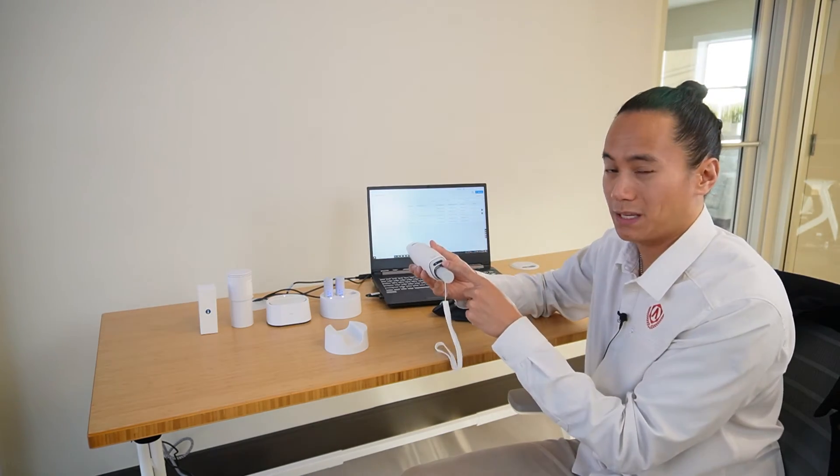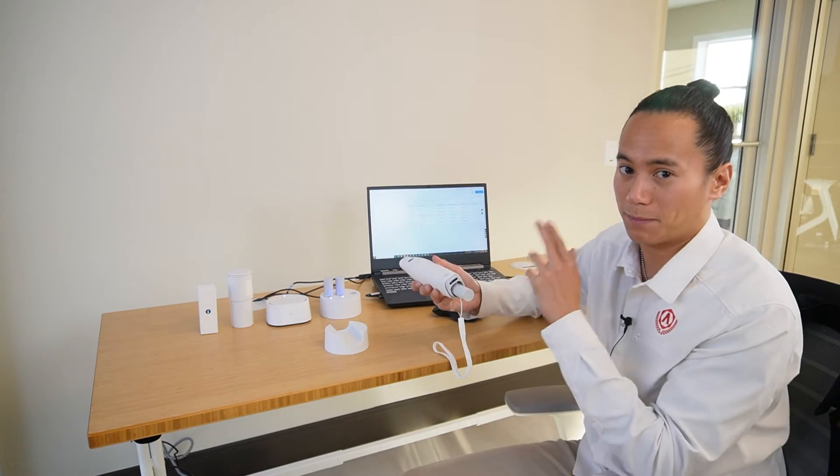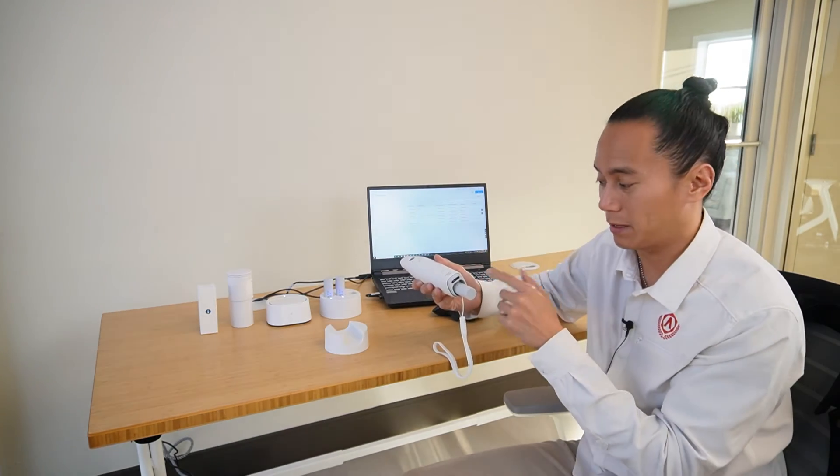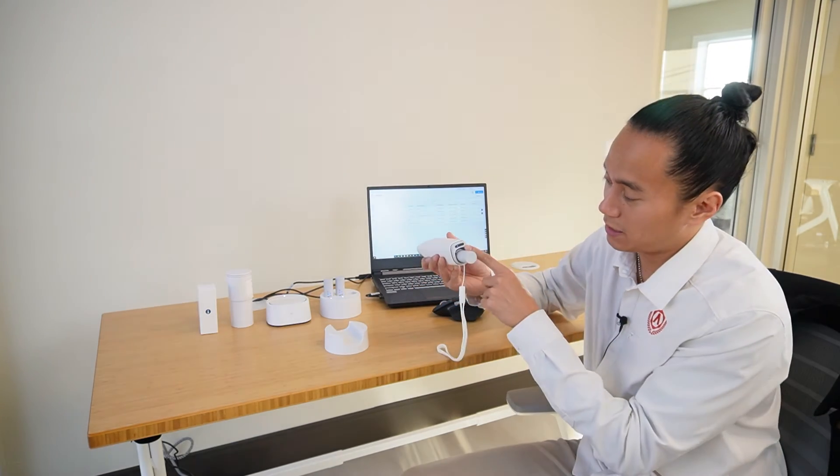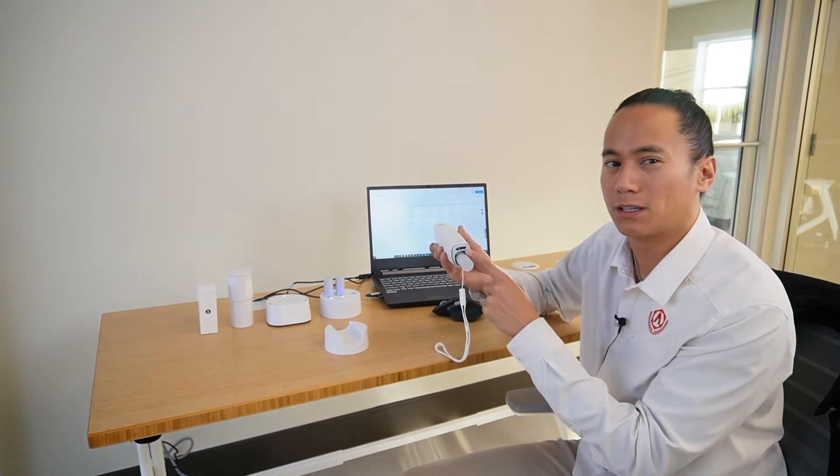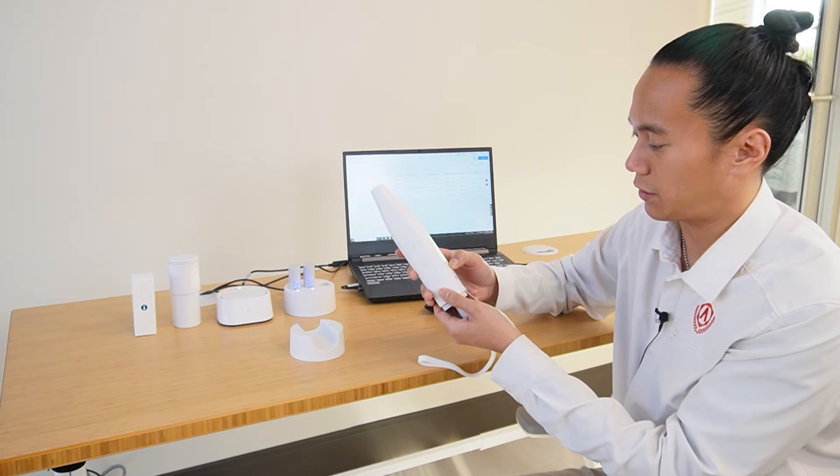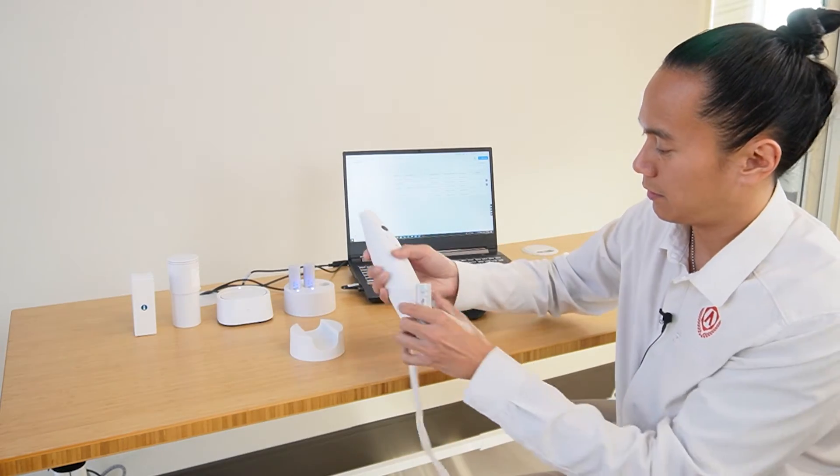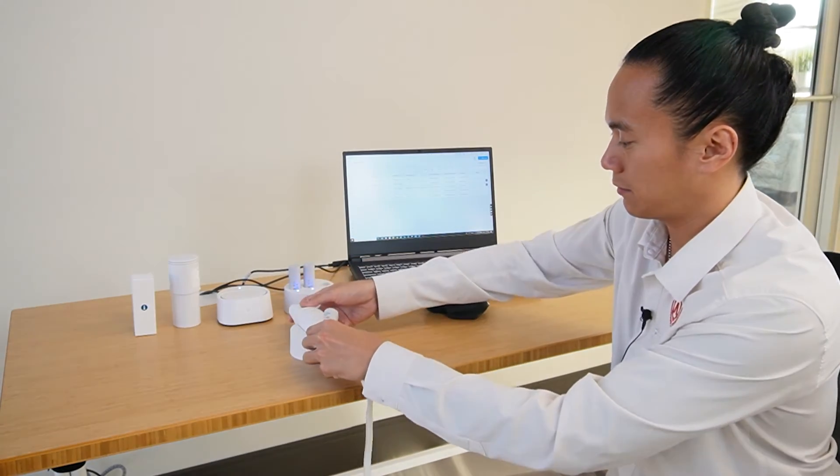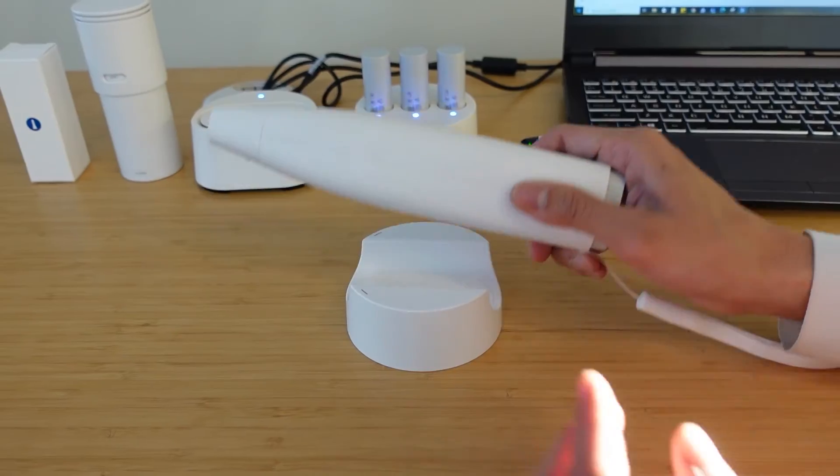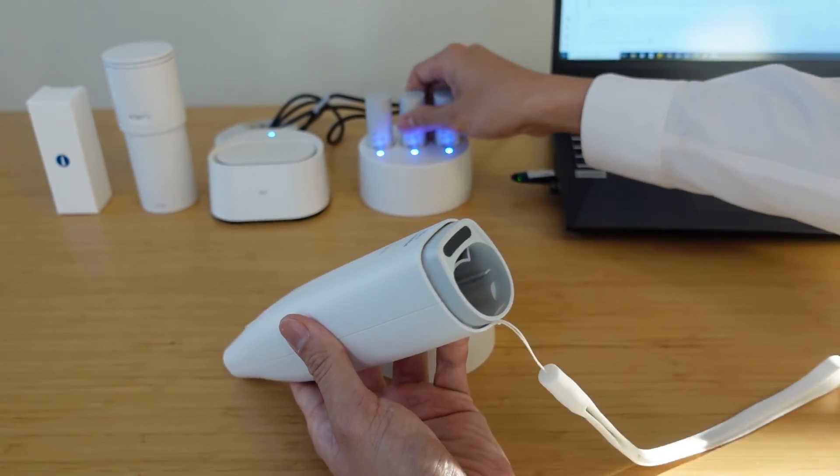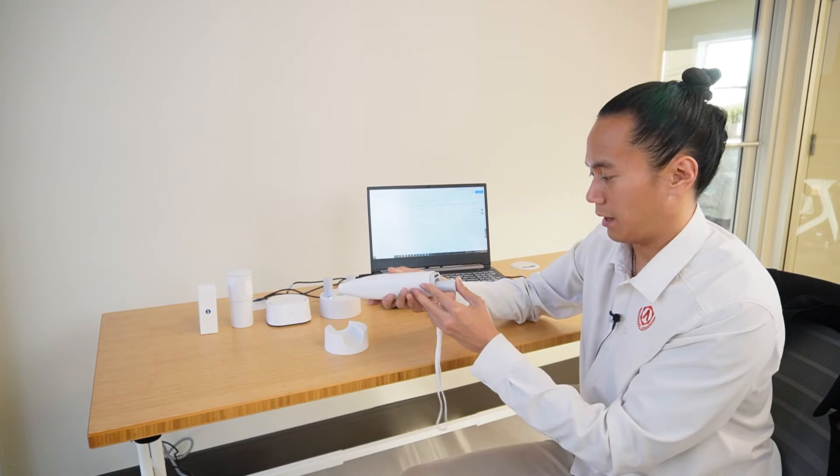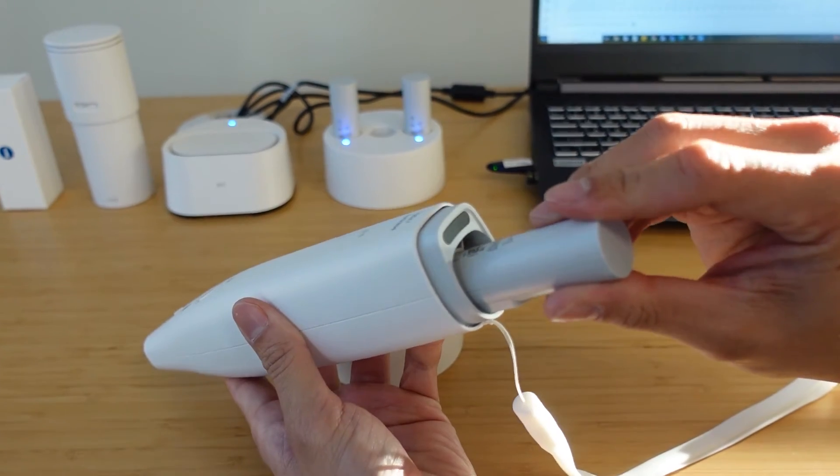Three dots is going to be 80 to 100% battery. Two dots is going to be about 50% to 60% battery and one dot means that you're under about 20%. I can see here I only have one dot on my scanner so I'm probably going to need to use a different battery. Let's turn off the scanner here, place it back on the stand, put the battery back into the dock and grab a separate battery. Power this up one more time. Now we're going to see that we have three full blue dots at the bottom of the scanner.